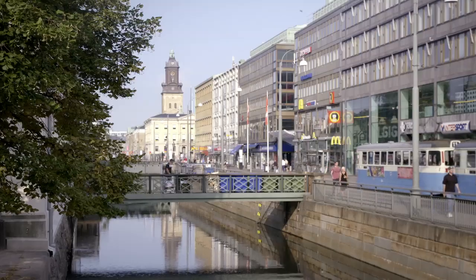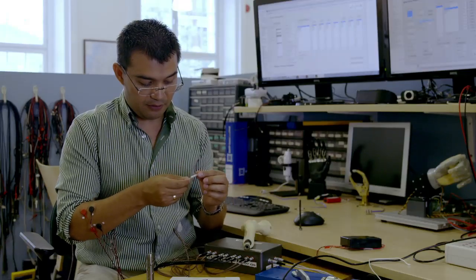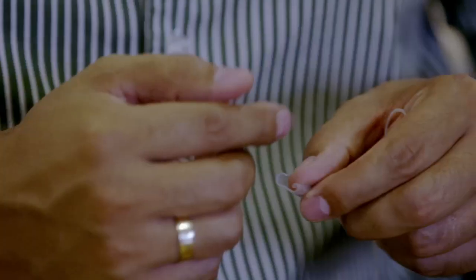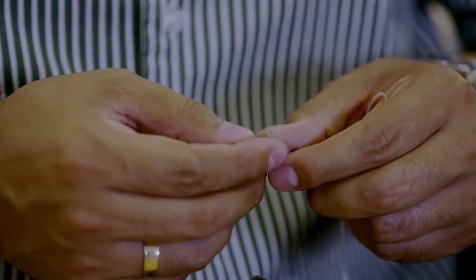Fifty miles away in Gothenburg, Max Ortiz Catalan is the brains behind the technology. You have the cuff electrode that is for the nerve. And this one also has a lot of different platinum iridium contacts inside that are arranged in a special way so you get a high signal to noise ratio.